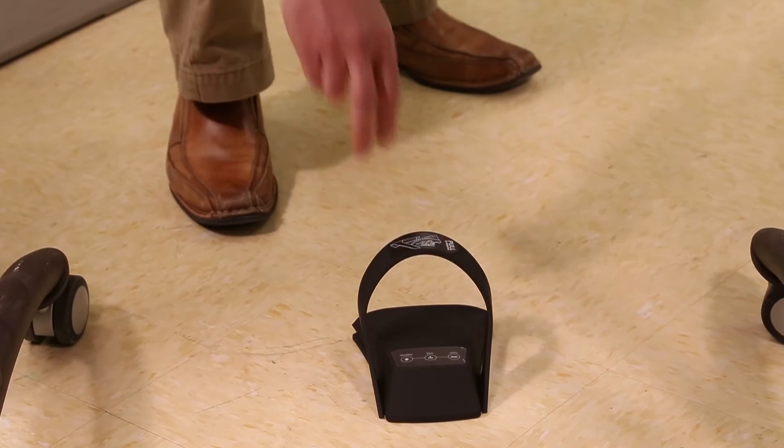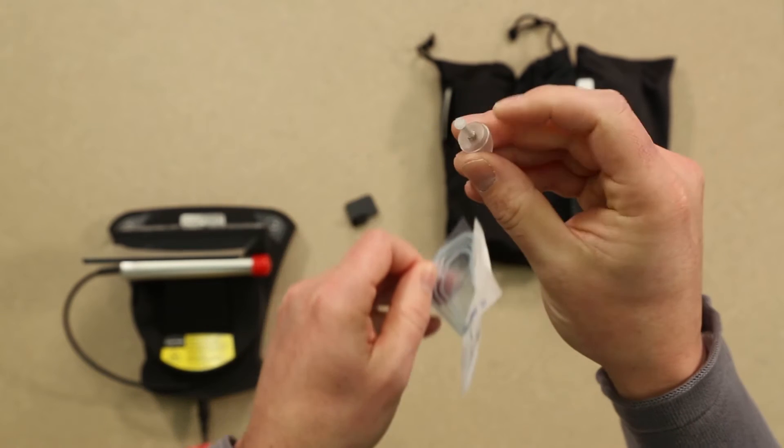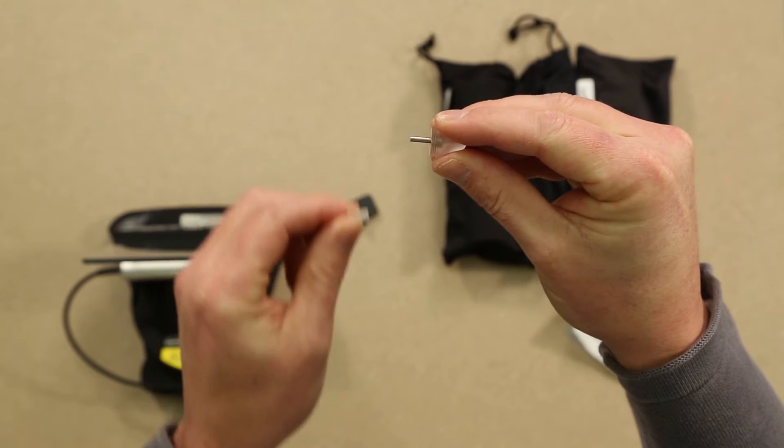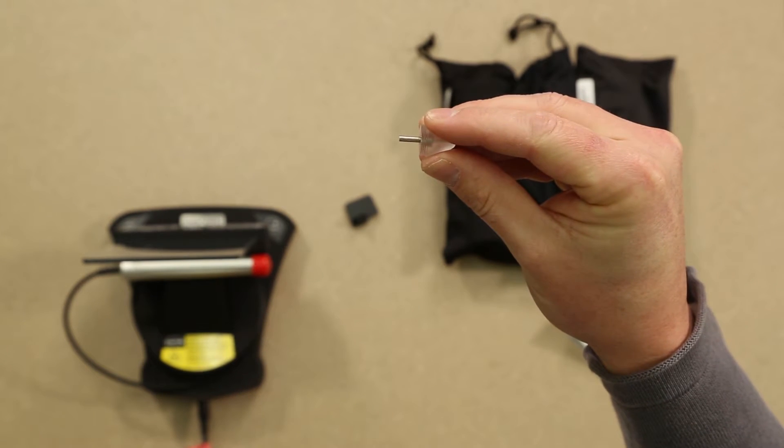Place the foot pedal on the floor and open the box of tips. Take one tip from the bag and remove the small plastic protector from the proximal end. Be careful not to touch this area with your fingers as any contaminant could interfere with the laser.